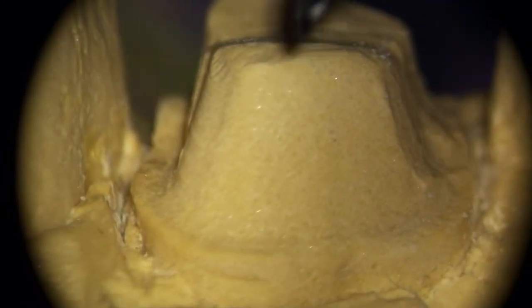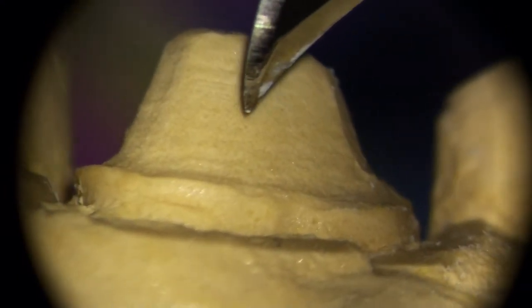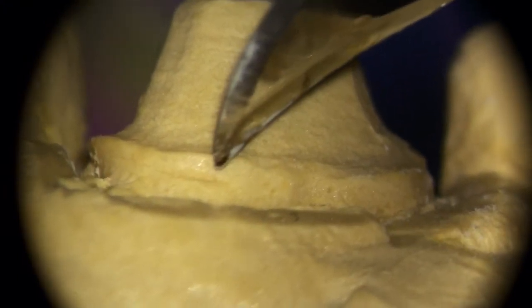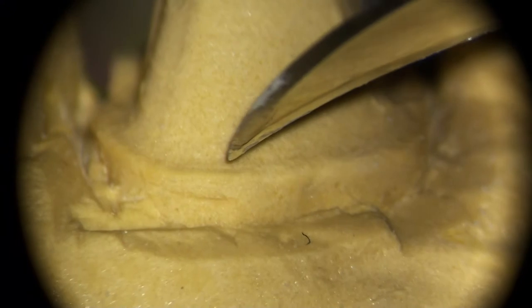But you can see the diamond marks on there, which makes it easier to distinguish between the prep tooth—you see up here, you see the diamond marks in that—and the unprepped tooth down here and the gingiva. And that's really handy sometimes. Sometimes that's all you have to work with to tell the difference between prep tooth, particularly on an equigingival shoulder margin.